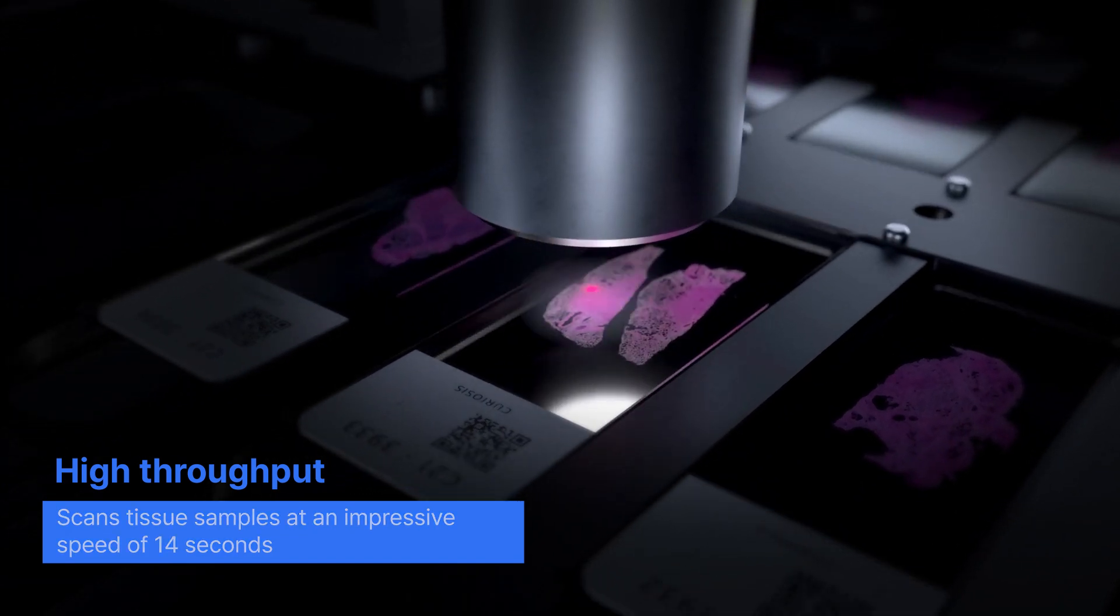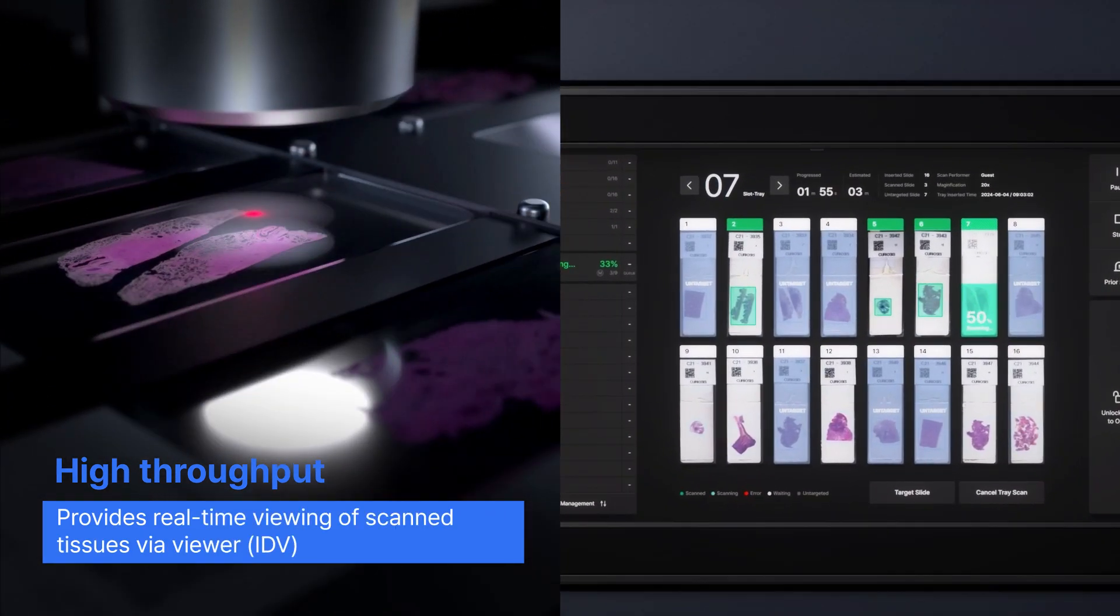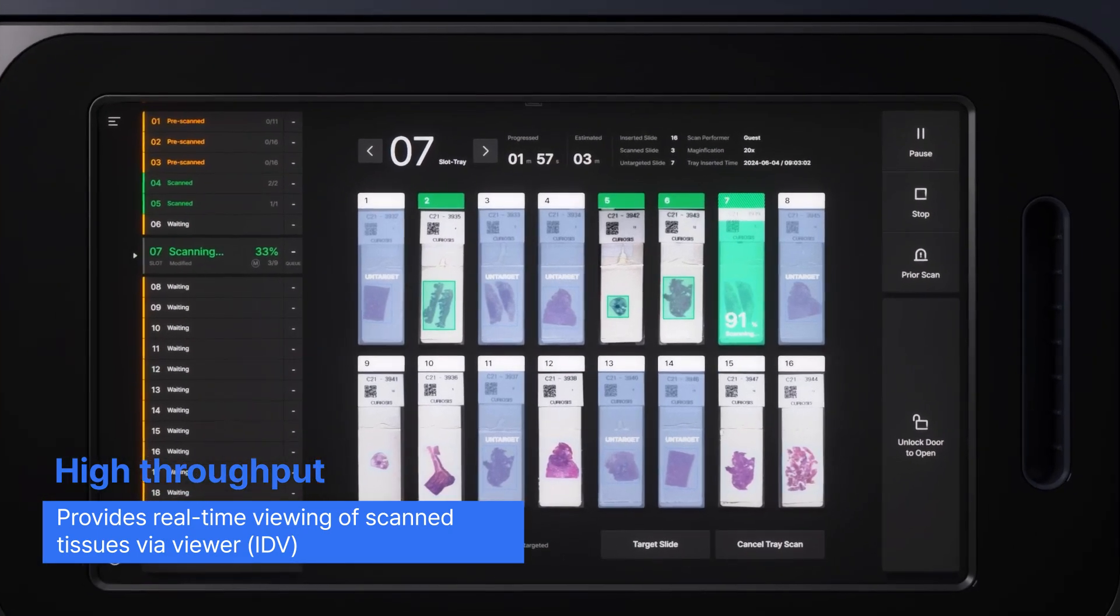Its 23-inch touchscreen and intuitive UI/UX enable easy operation and real-time viewing of scanned tissues.